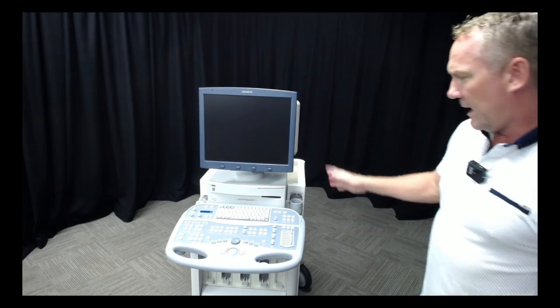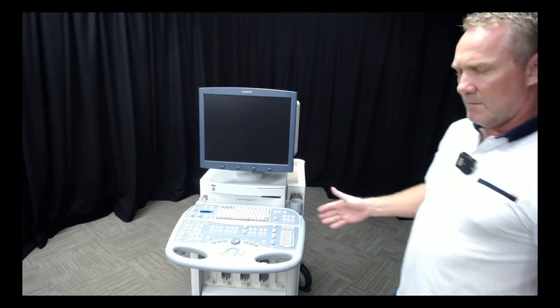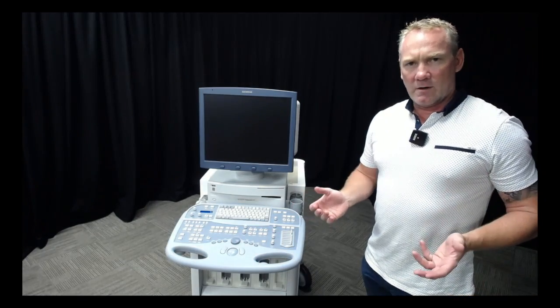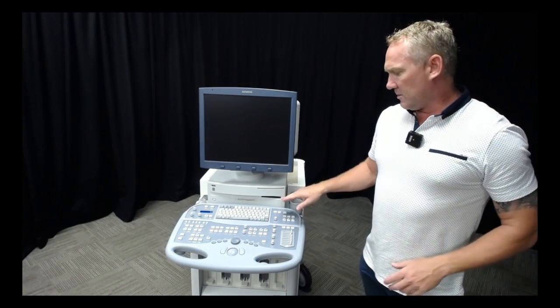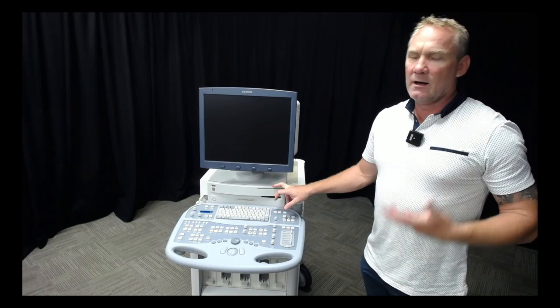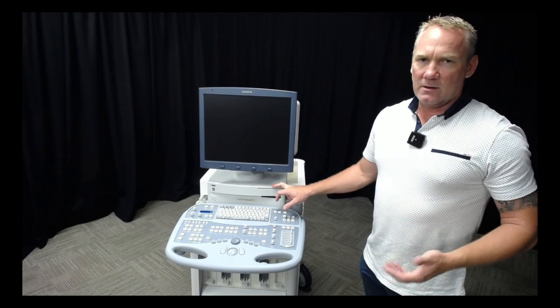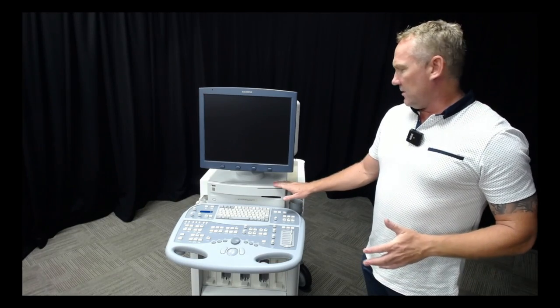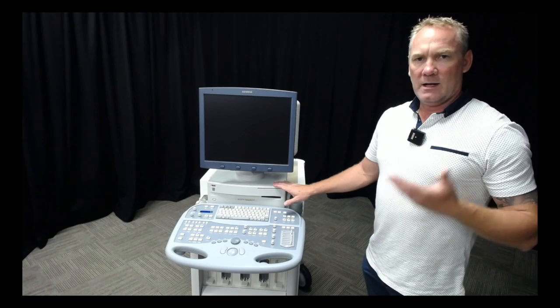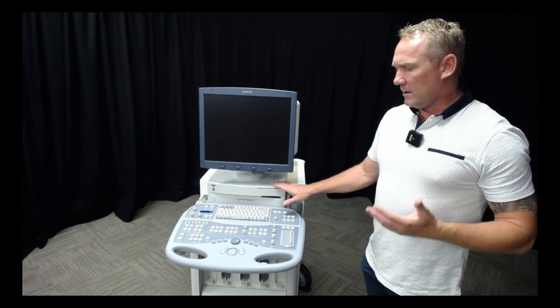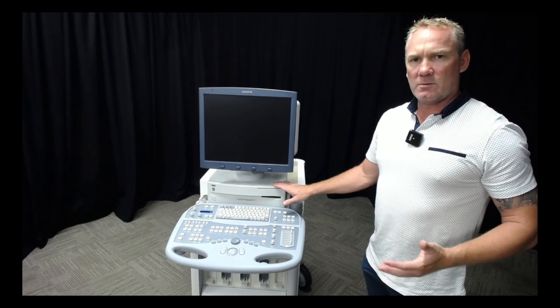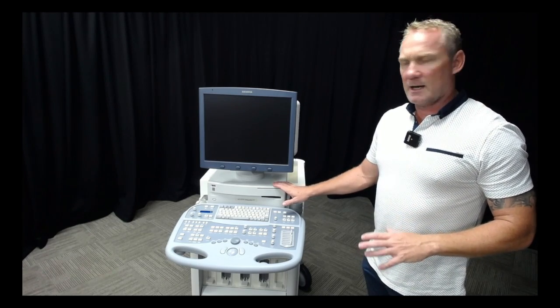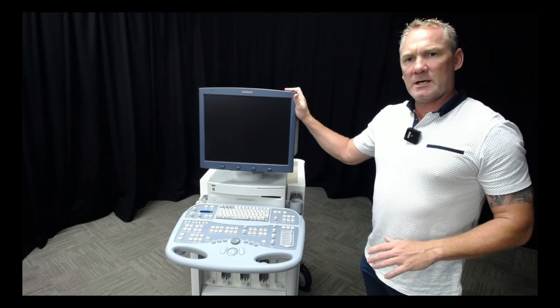I don't like to see pen on my machines. If there's a biro mark that someone's scribbled on a machine, we need to clean that off and keep our gear looking good. It's not just about aesthetics, it's about infection control and making sure these machines last as long as we can.